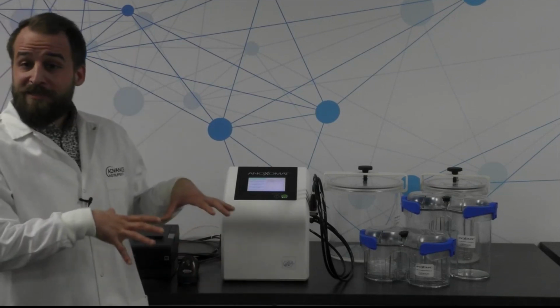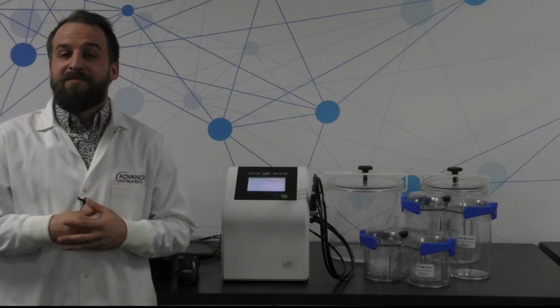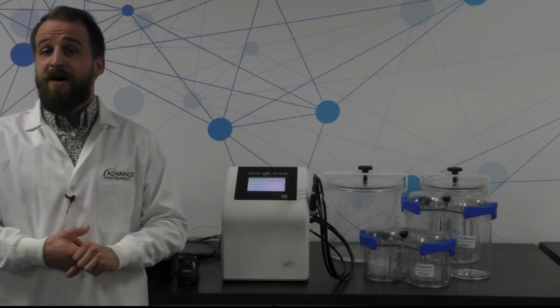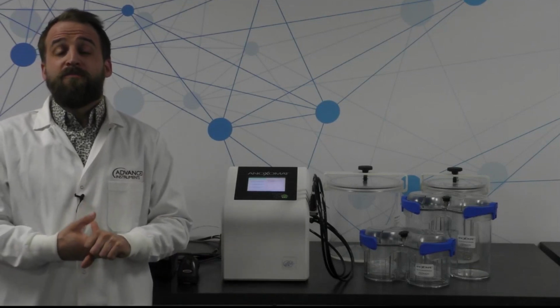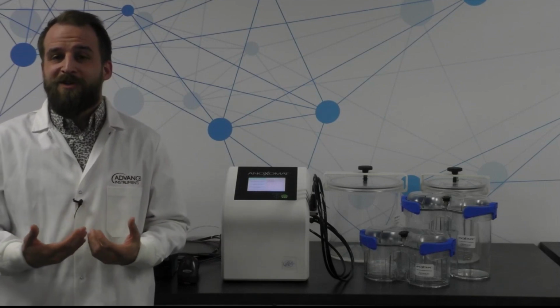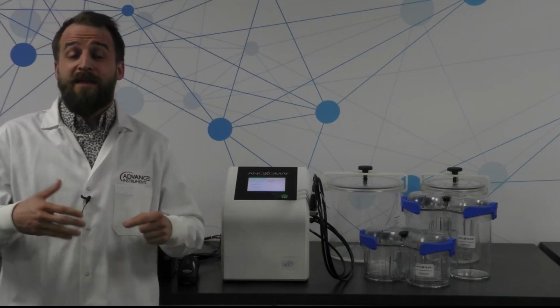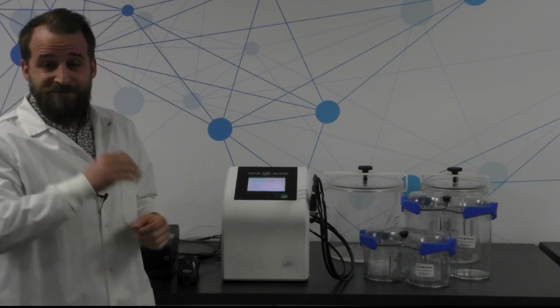I haven't used this one specifically in practice in the laboratory, but I can tell you that these Anoxomat anaerobic jar systems really make a difference in terms of the quality of the cultures themselves, your ability to more quickly report meaningful preliminary results, depending on when you go check up on growth for the first time in your anaerobic culture workflow. And I'll show you some pretty neat software features because they can really help you determine when the appropriate time is to check for growth for these cultures, depending on when you like to do that.